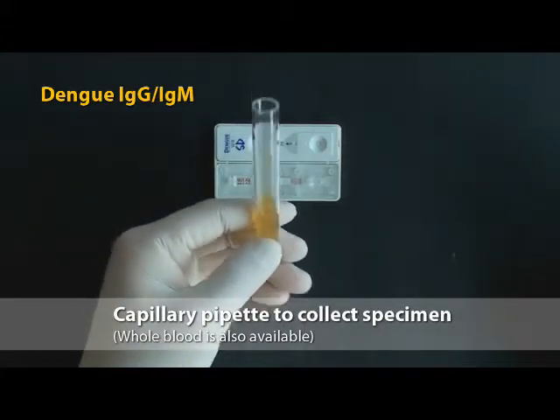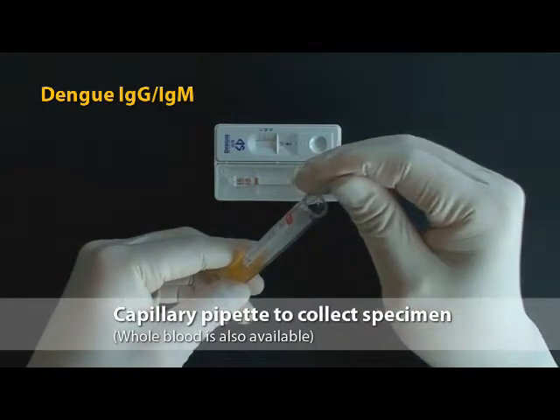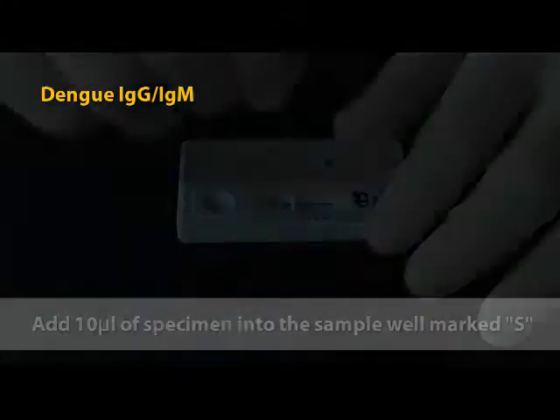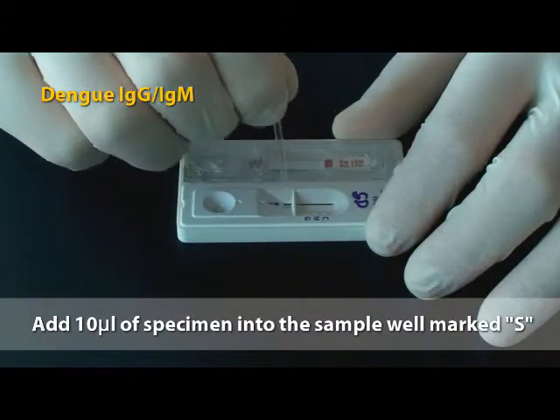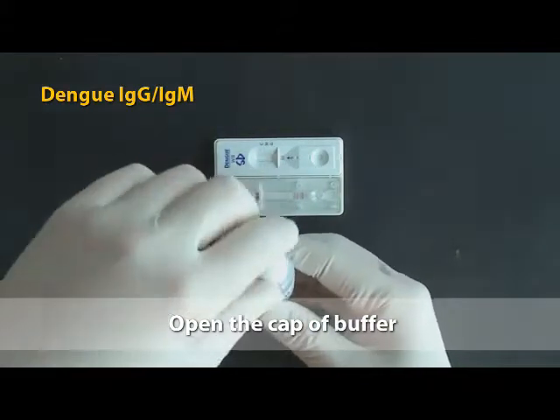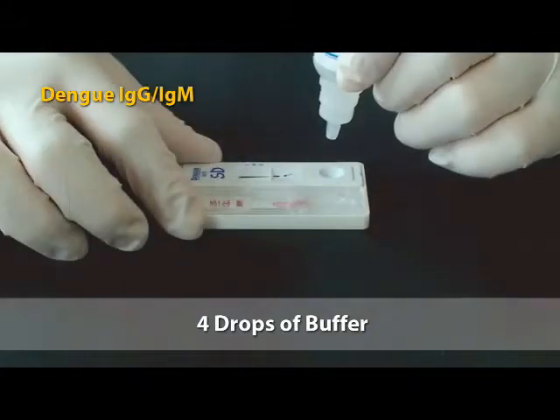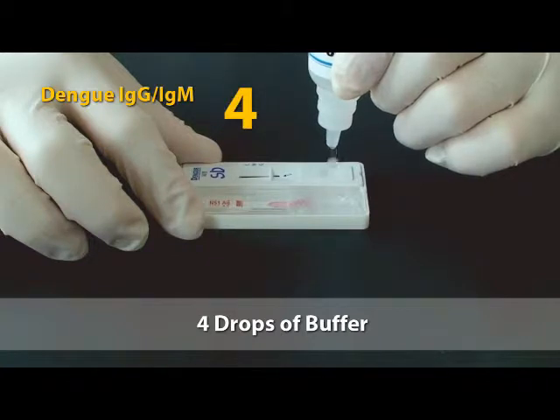At the same time, using the capillary pipette, take the sample from the collection tube containing anticoagulants such as heparin, EDTA and sodium citrate, and add 10 microliters of serum or plasma into the sample well for antibody test. And put 4 drops of assay diluent into the round-shaped assay diluent well. 1, 2, 3, 4.